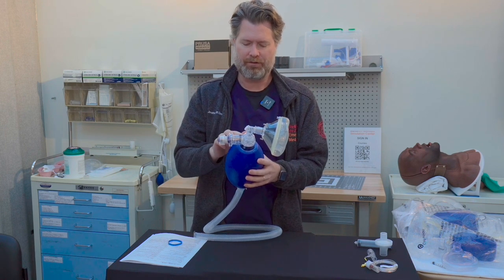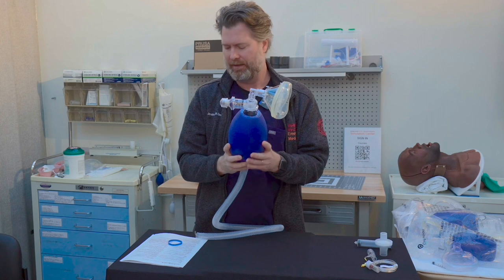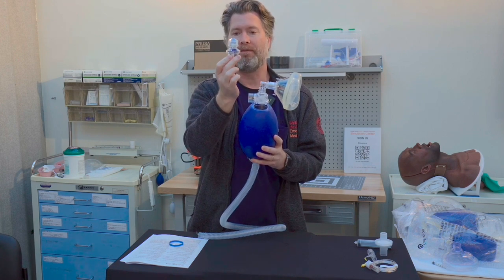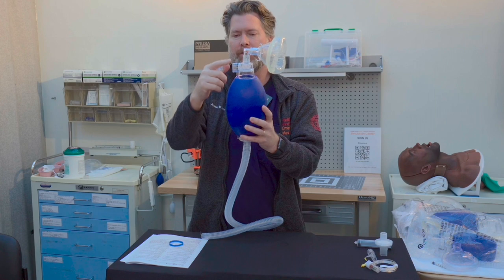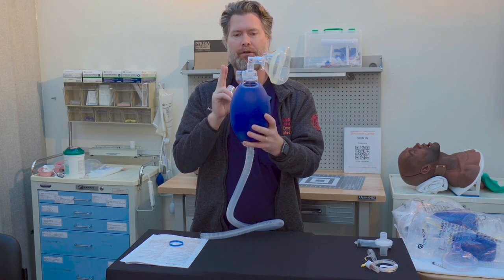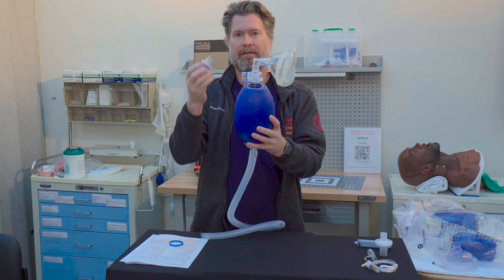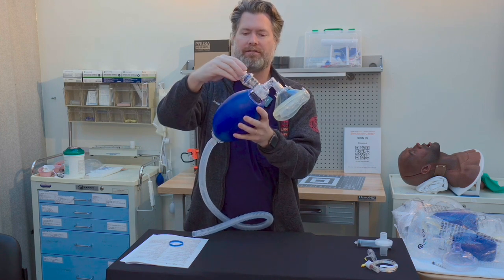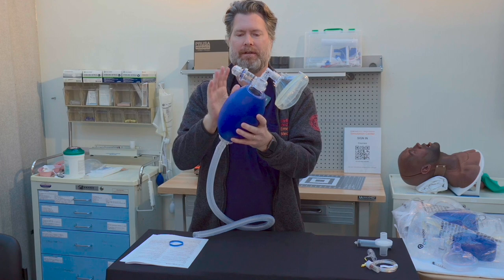As you leave the bag and head towards the mask, there are a few structures here that are important in terms of design. This bag comes with one of the most important devices right here — the PEEP valve. Many devices don't have a PEEP valve standard on the exhaust port, so oftentimes you'll get a bag that just has a little cover around it. But if you have a really sick patient who is shunting physiologically — maybe multifocal pneumonia, ARDS, or acute pulmonary edema — this PEEP valve is going to be a huge part of your success at oxygenation. It attaches here and you can adjust the level of PEEP from about 5 all the way up to about 20.